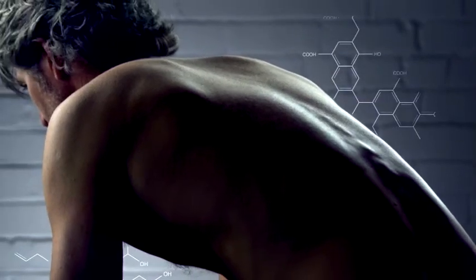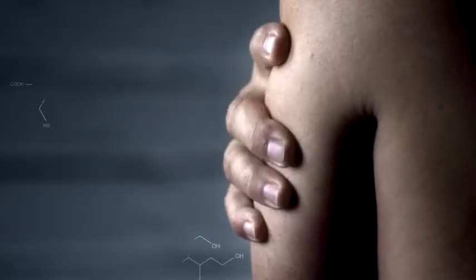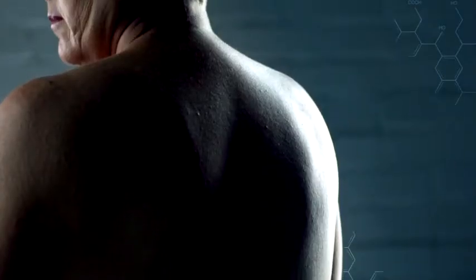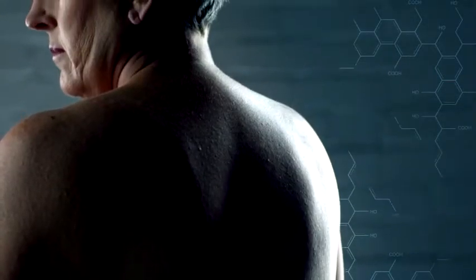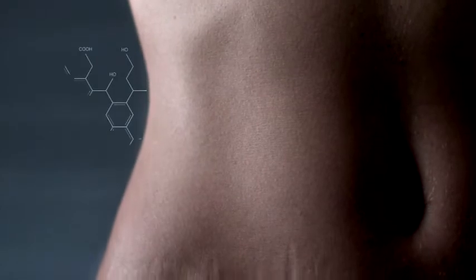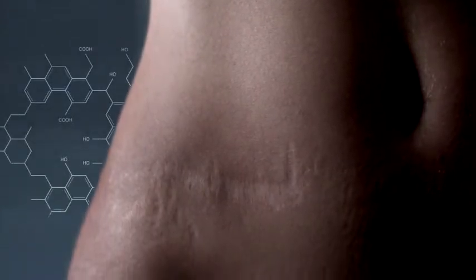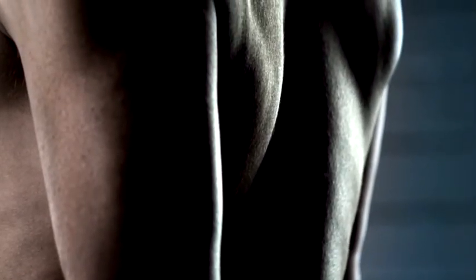The human body is an engineering wonder. But change is a constant in nature. As our bodies age, they change. The technologies to repair or replace parts of our bodies change too. Over time, orthopedic implants have evolved from bone to metal to polymer, as scientists search for the strongest and most compatible solution.